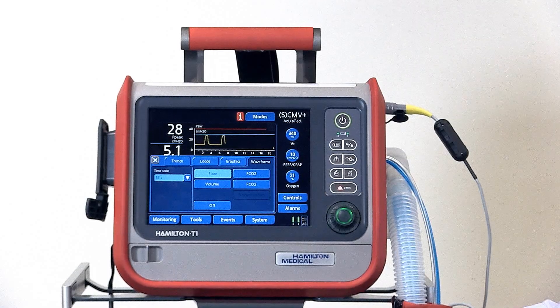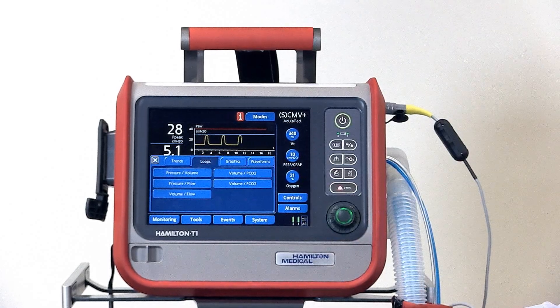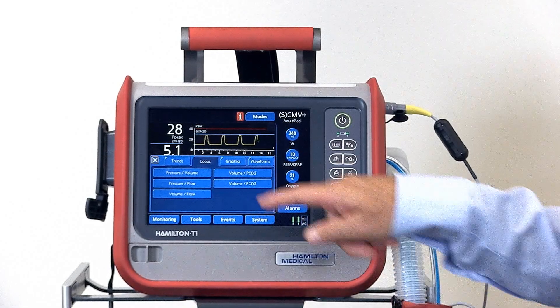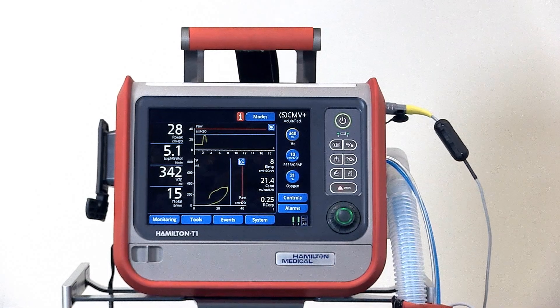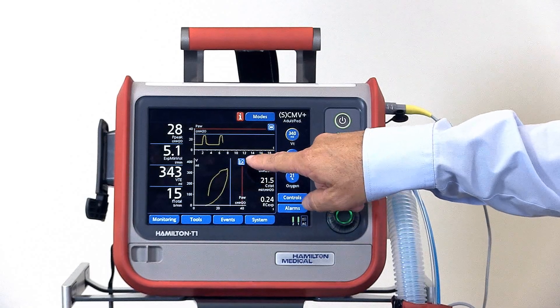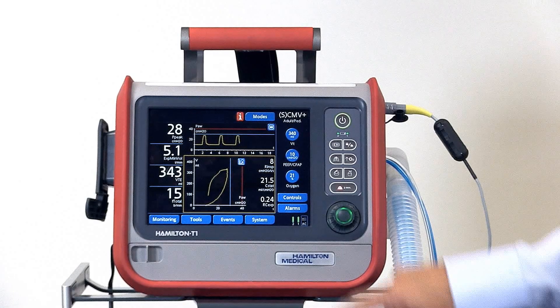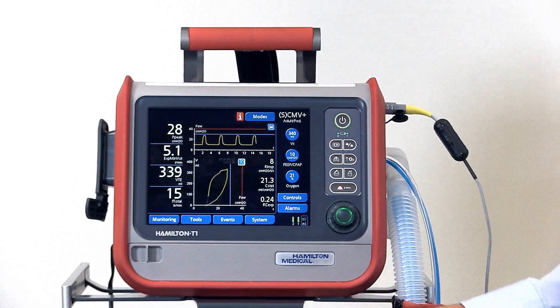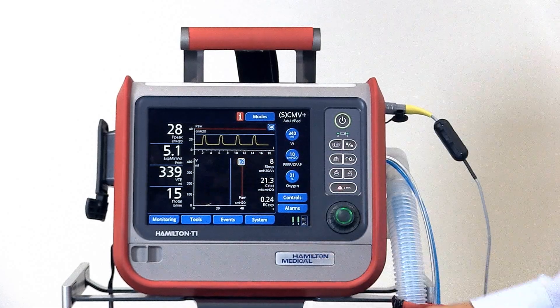We can also display loops. Select Loops from the graphic window — you have your choice of several loops. Let's display a pressure-volume loop. Each loop can be stopped to display a reference loop for comparison. To get rid of the reference loop, just tap the button again.